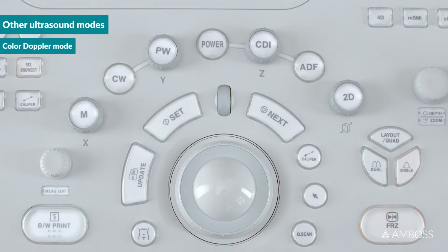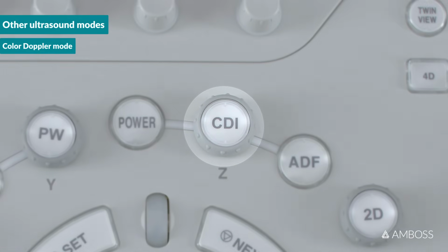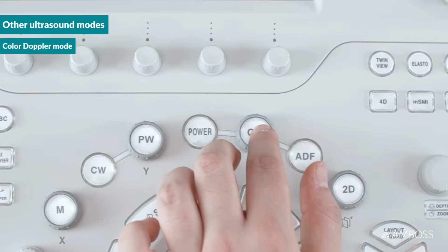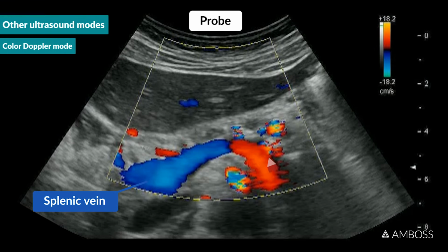On the machine shown here, this function is activated and deactivated by pressing the CDI button, which stands for Color-Doppler imaging. Other manufacturers label this differently, for example, C for color or CF for color flow. When Color-Doppler mode is activated, a box appears on the screen. Within that box, flow toward the probe will appear red and flow away from the probe will appear blue.